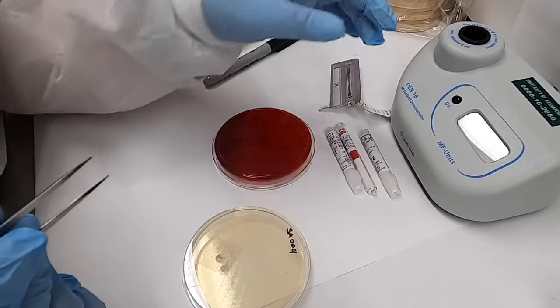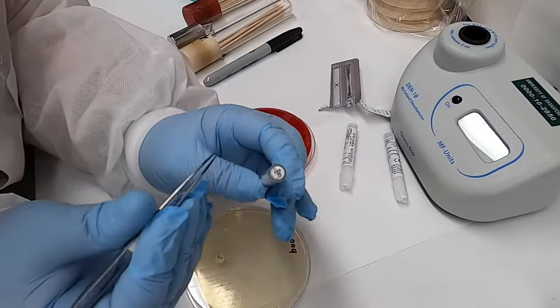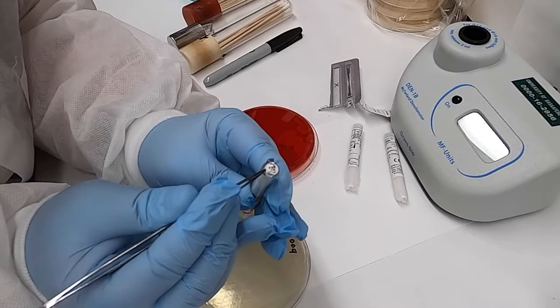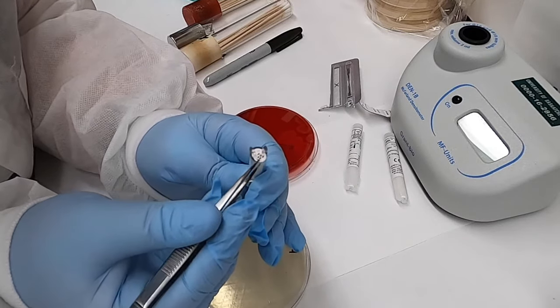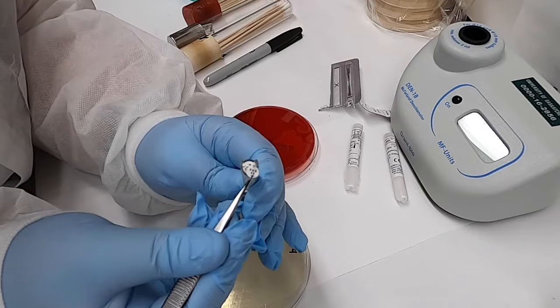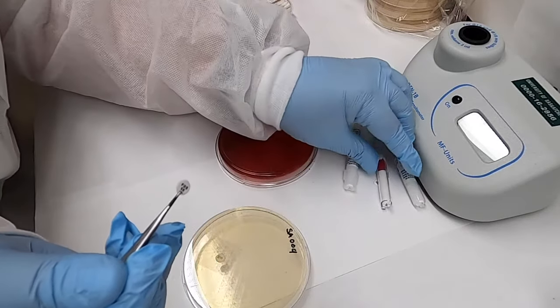In preparation for doing this testing, it's really important to take the disks out of the fridge or freezer where we commonly store them and allow them to warm up to room temperature. This ensures that the test will function appropriately.